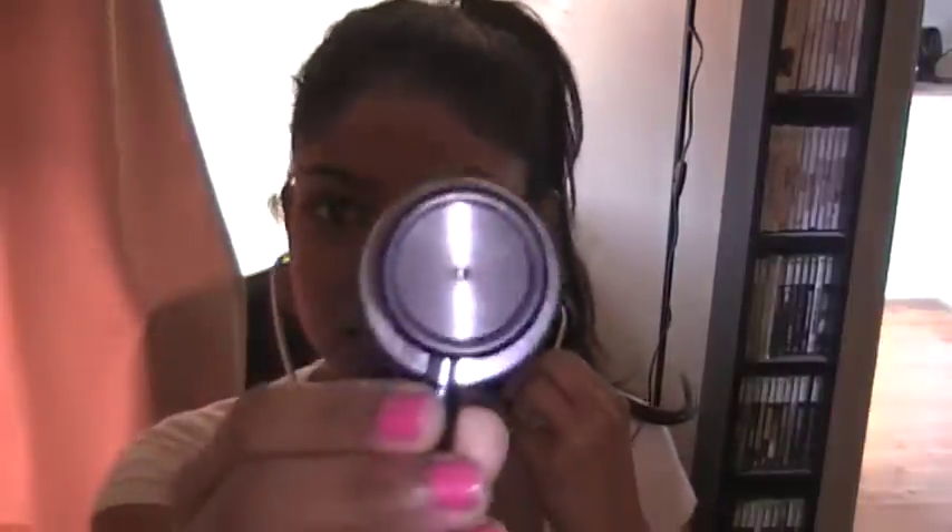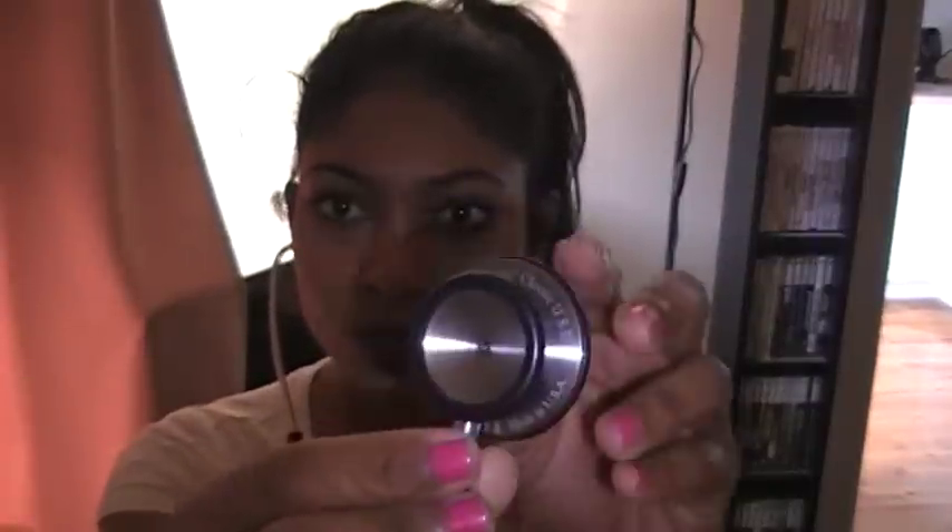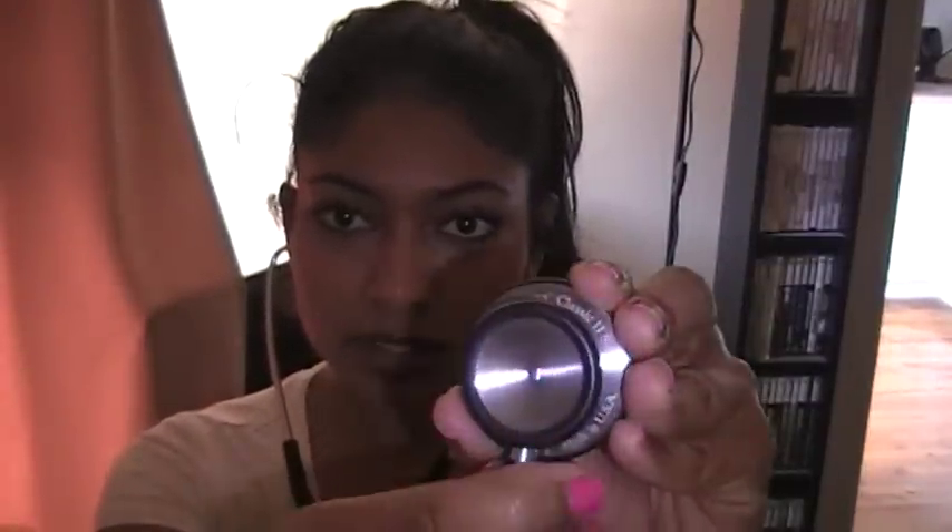It's off when you see the clear part, and it's on when you turn it like this and tap — you can actually hear it. I really like this stethoscope. It's amazing and wonderful. I've used it for many, many years and have no bad complaints about it.